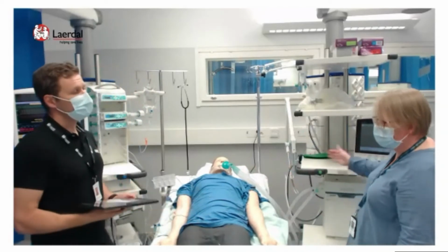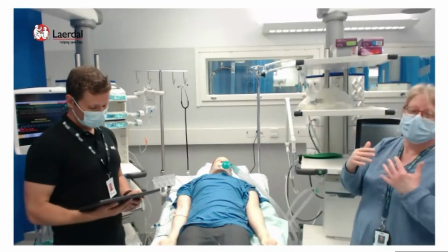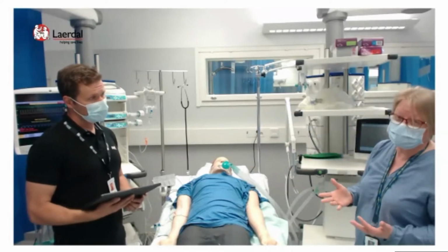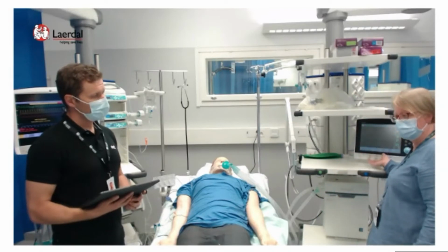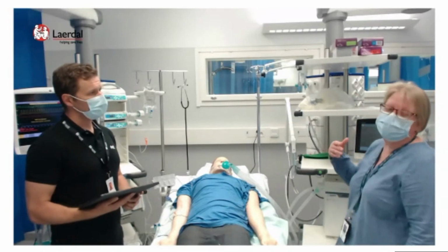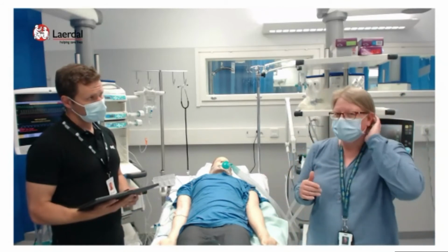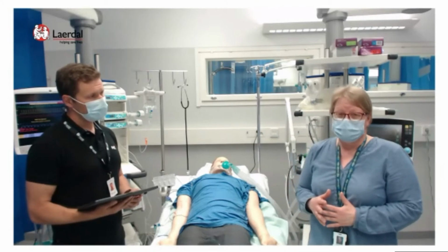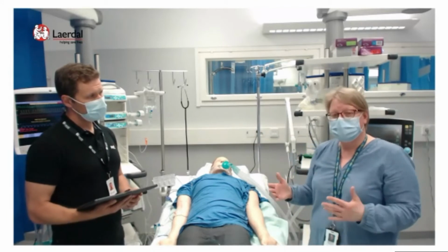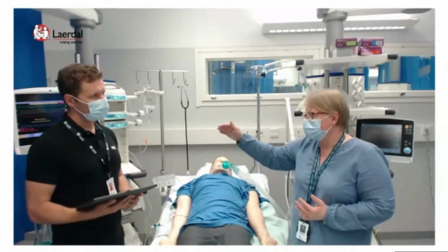The first thing to use when the oxygenation goes lower is to increase the positive end-expiratory pressure, so we open the alveoli. I would increase the PEEP from 8 to 10 or 12, or maybe you shouldn't fix on even numbers, so maybe 9 or 11 or 13, whatever makes any difference there.